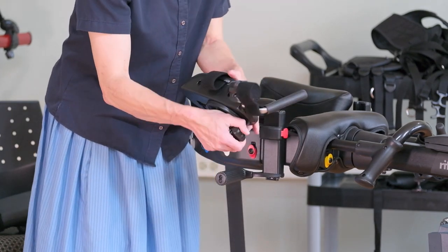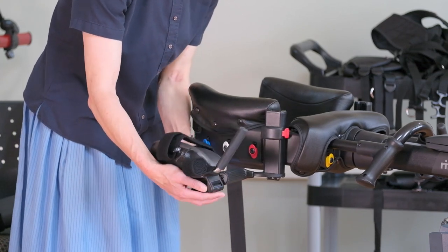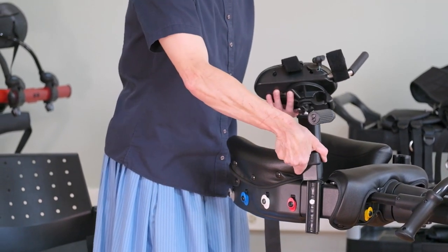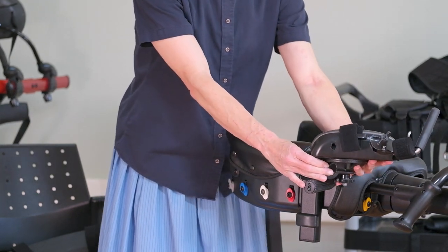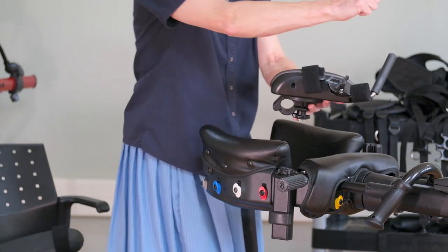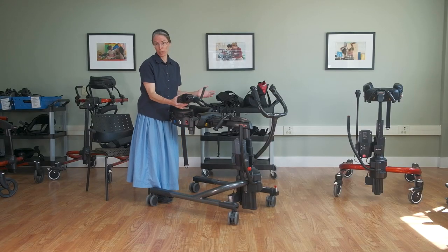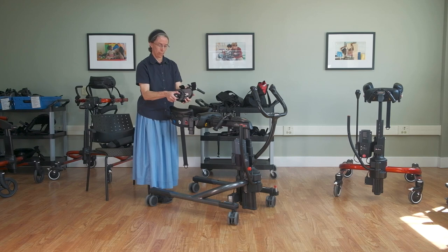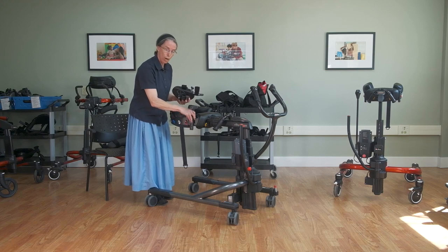You can really do tinker toys and get it to fit as you need for your client. A down-and-back position would bring the elbow kind of under the shoulder, whereas a forward-and-up position could bring it quite far forward — either to position the shoulders forward of the hips, or if you're bracing your arms for a seated transfer, maybe for toileting and they need that kind of support. Bear in mind there's a lot of versatility with your positioning of the arm prompts.